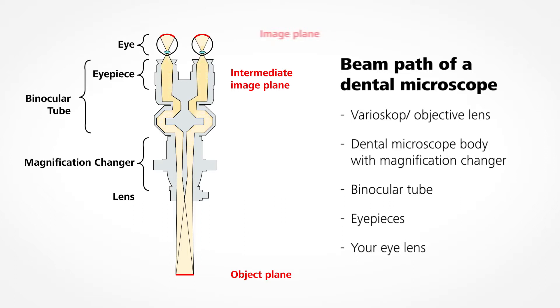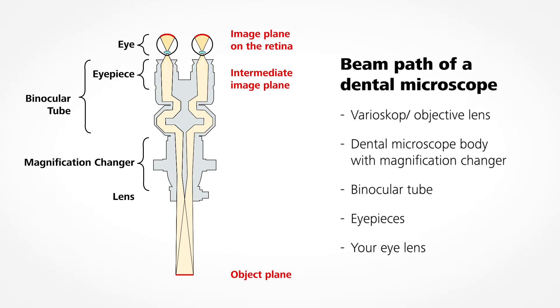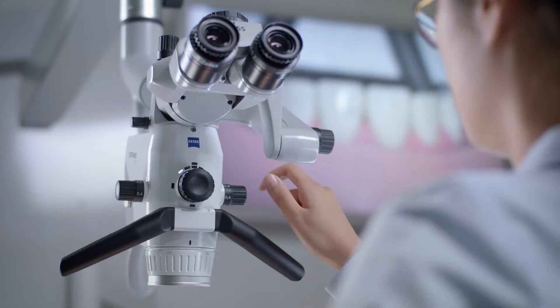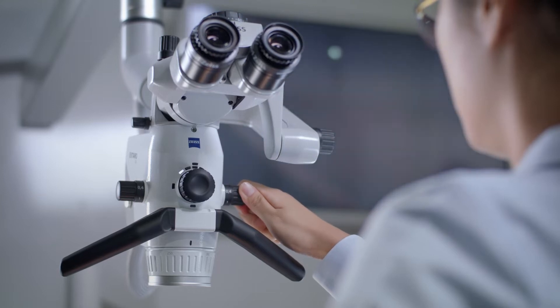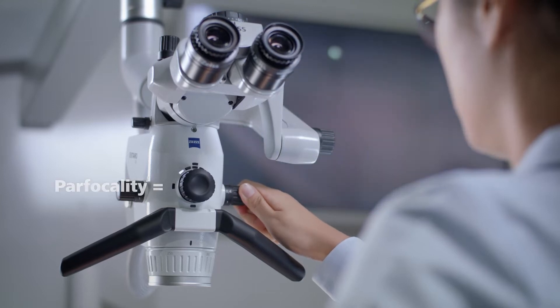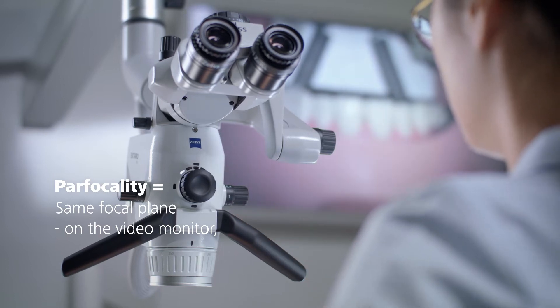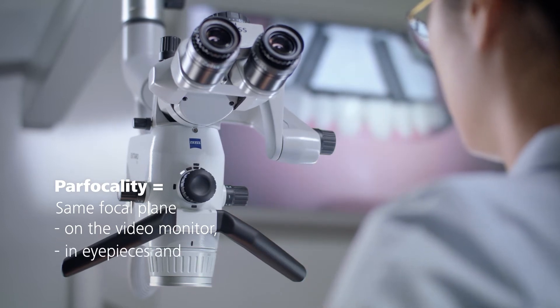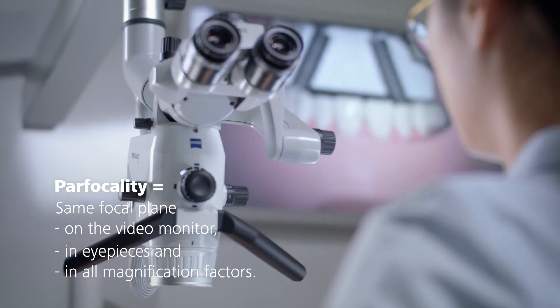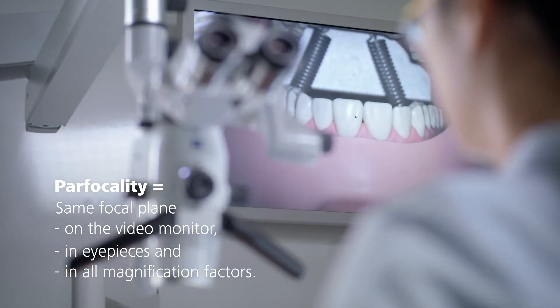The eye lens receives the image and focuses it onto your retina. One of the first steps of setting up a dental microscope is bringing the device into parfocality — achieving the same focal plane on the video monitor and in both eyepieces at the same time and at all magnification factors without refocusing.